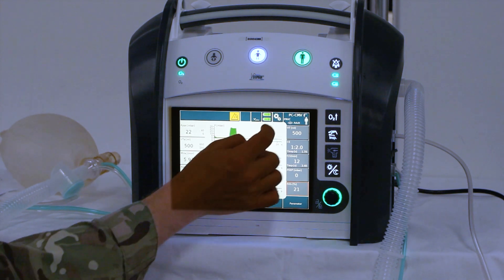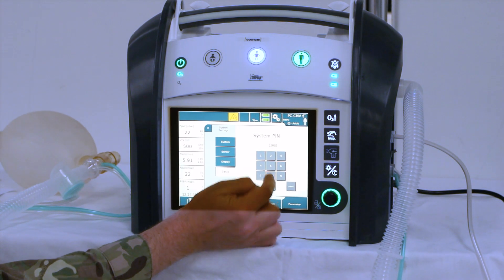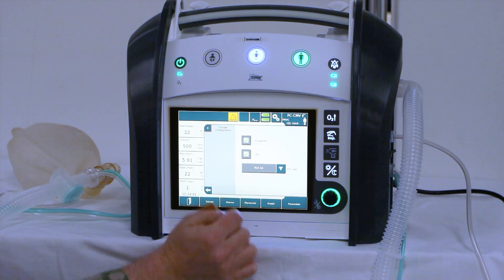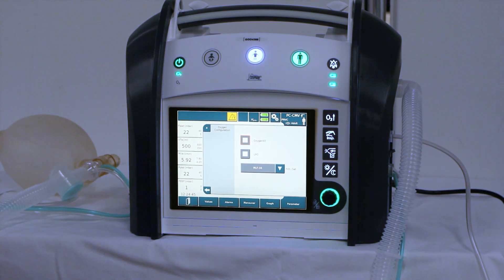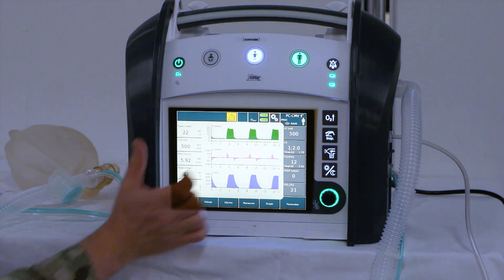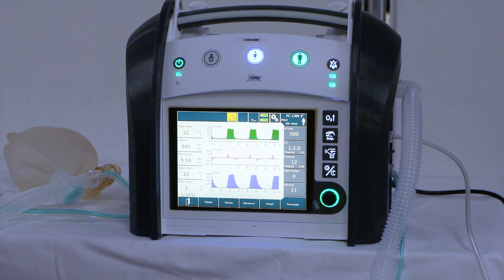We then need to go back into settings, set up, put our code in again, click next, and put it back to its default settings of both oxygen 93 and LPO deselected. Come out of that menu and that test is complete.